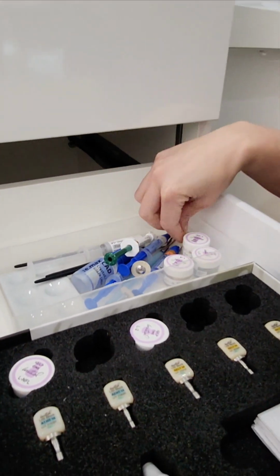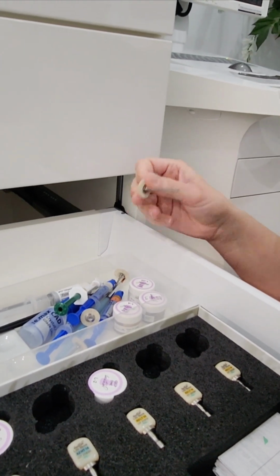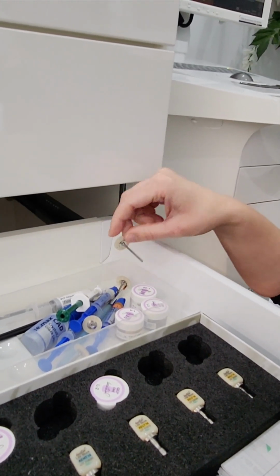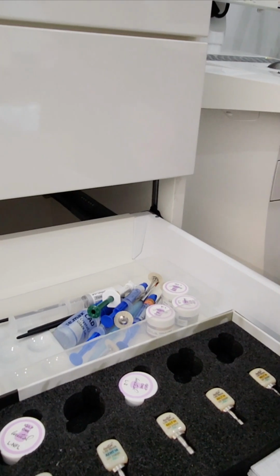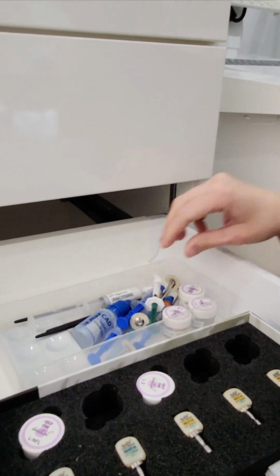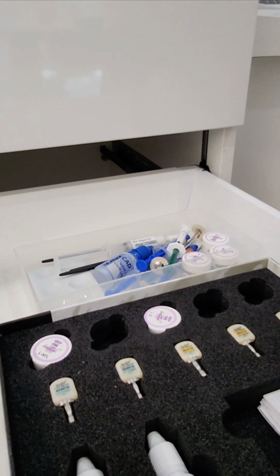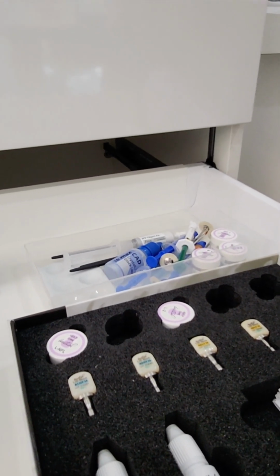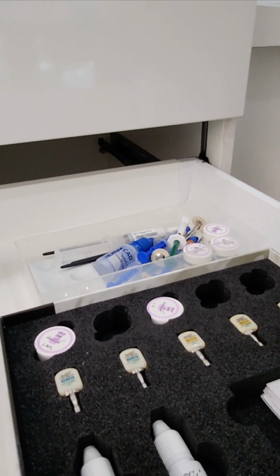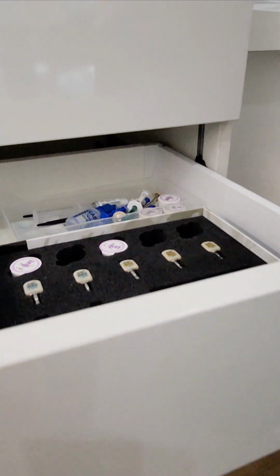diamond polish. I think it's goat hair or something. That's meant to be used with the diamond polish. Okay, when you want to polish your Emax, I usually use just high speed and slow speed handpiece. I don't have a lot of straight handpiece burrs. I will show you which burrs I usually use.